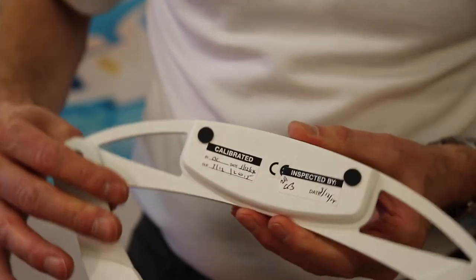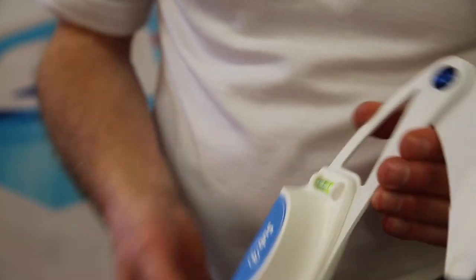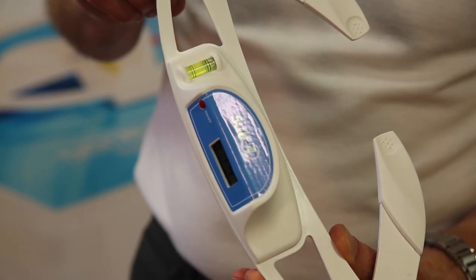The DPI is light and easy to use and can be used in a clinical setting or in research. The frame is incredibly light and easily cleanable. The device is calibrated to a high level and is accurate to 0.1 of a degree.